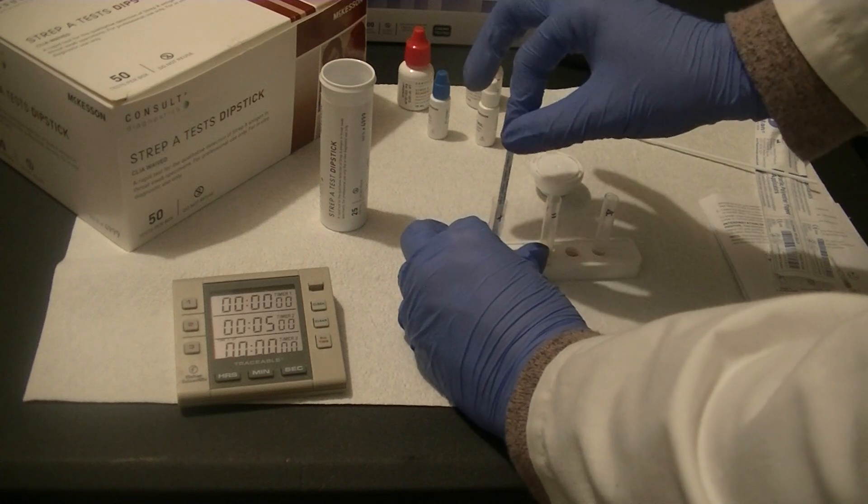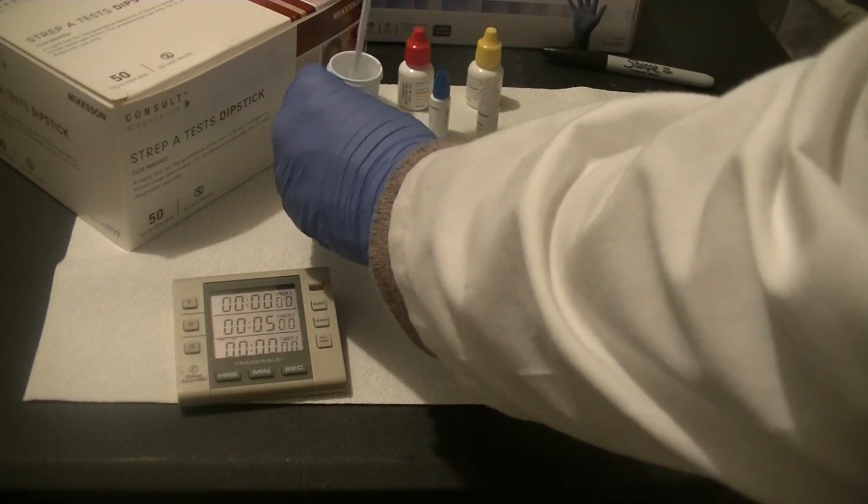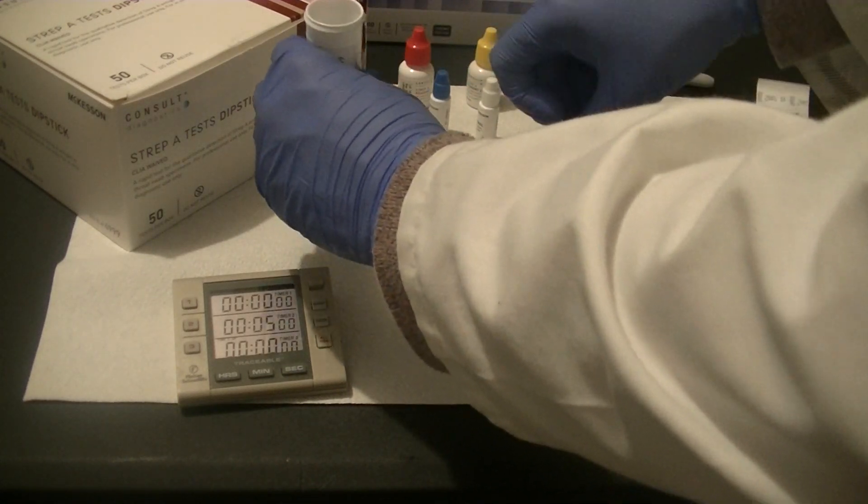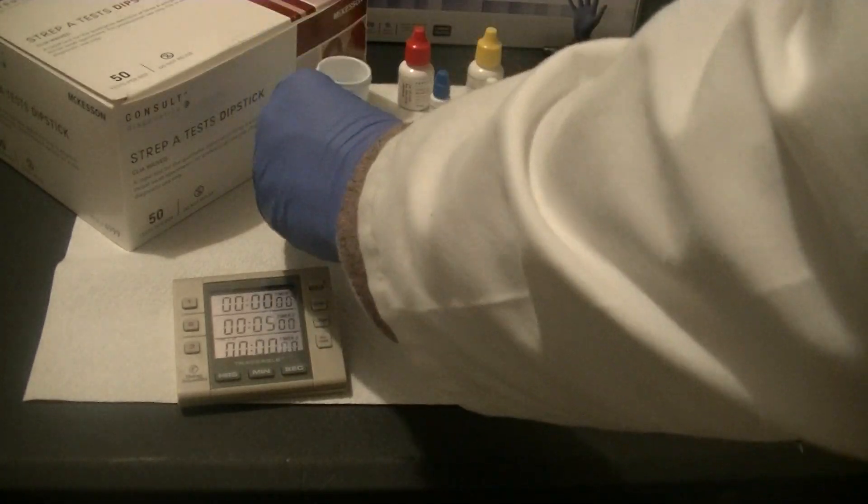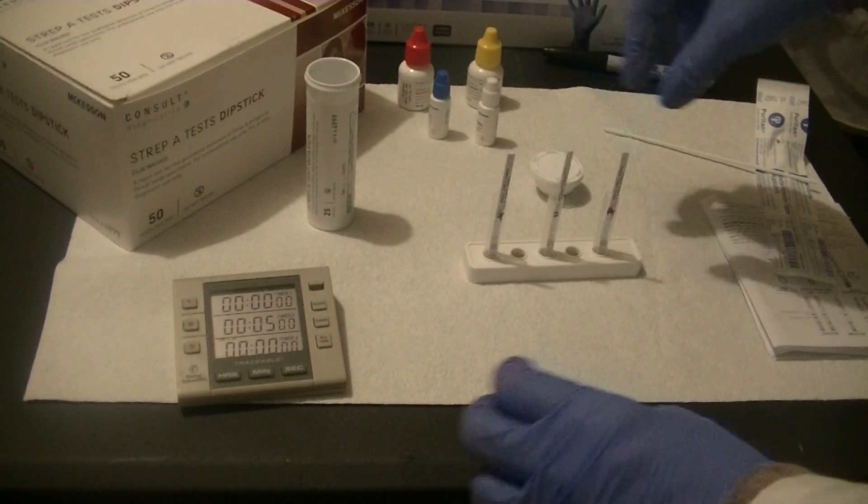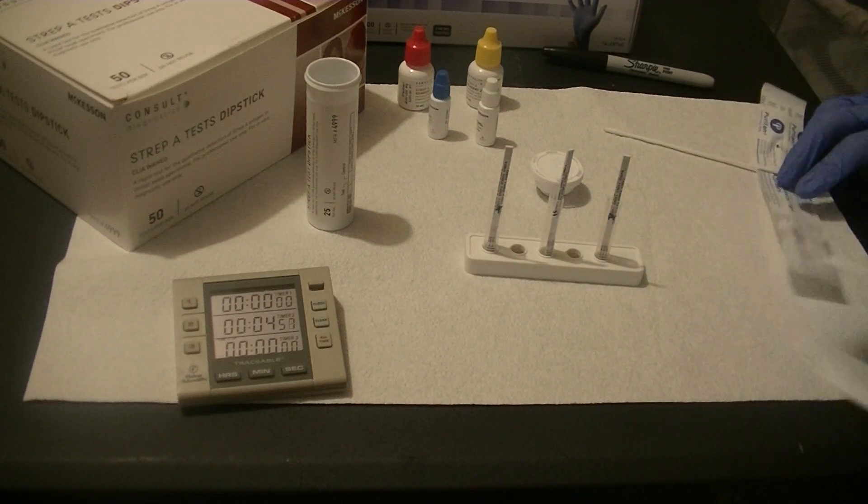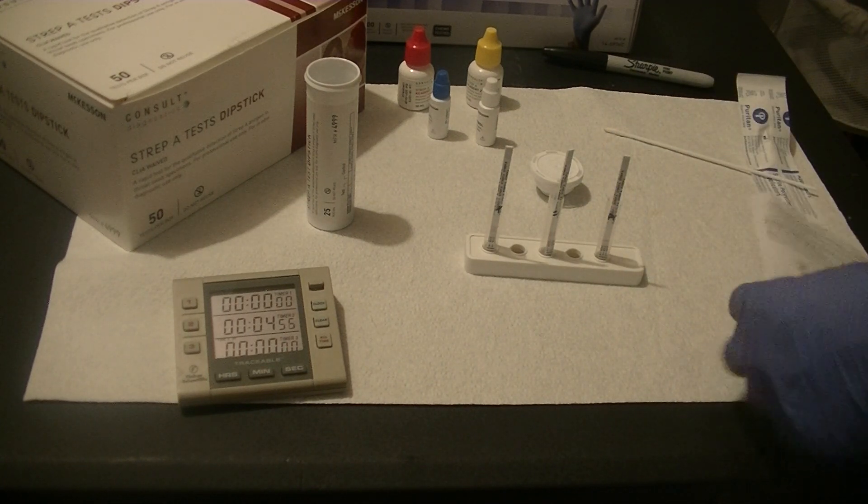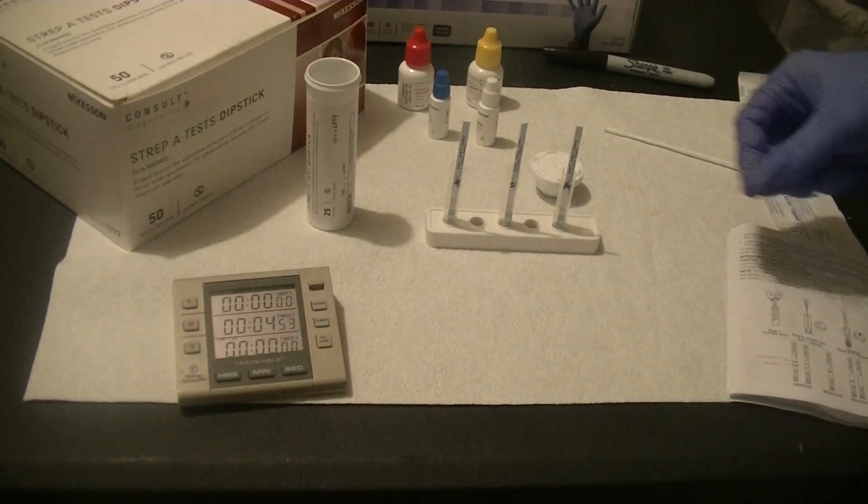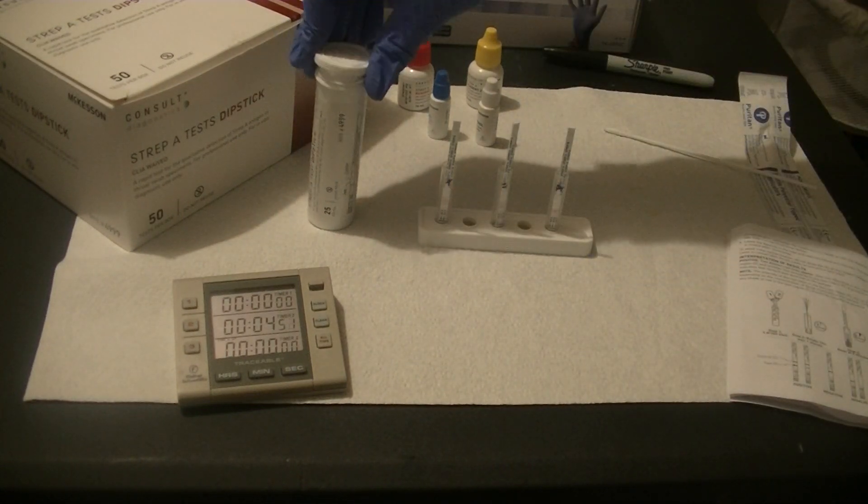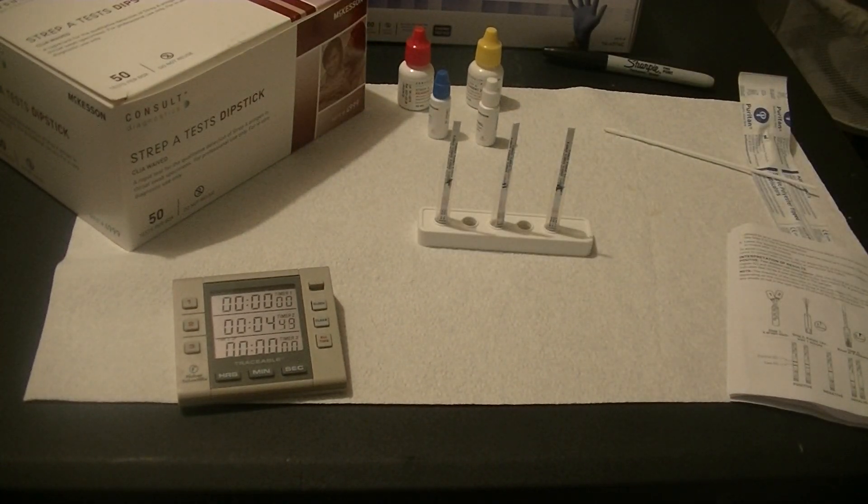It's going to allow us to detect the presence of streptococcus antigen in the positive control, the negative control, or the patient sample. This is a reaction that lasts for five whole minutes. So we're going to leave those sticks in the extraction tubes for five whole minutes.